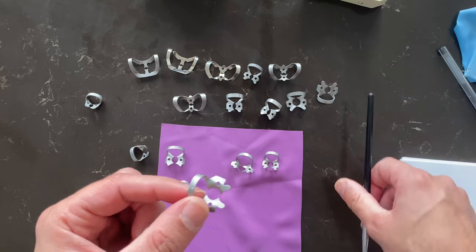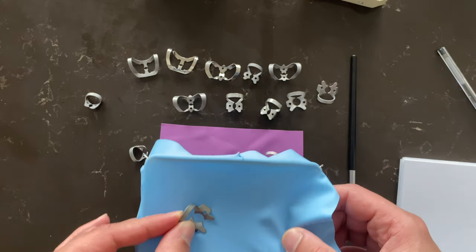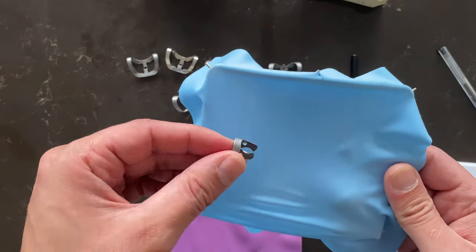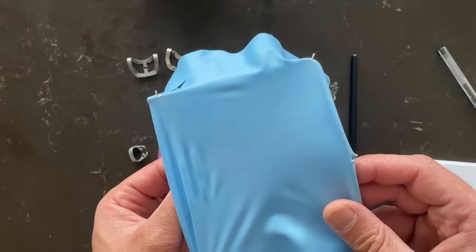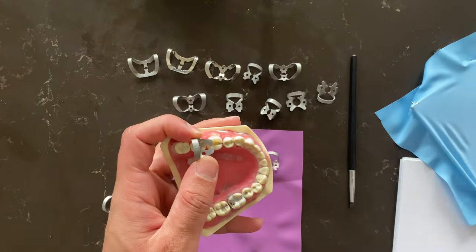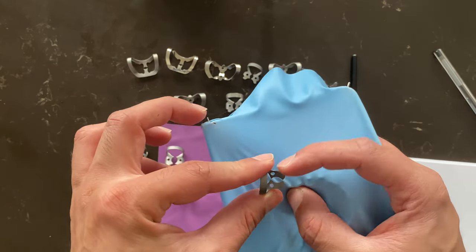The advantage of a winged clamp is that you can assemble everything outside, and once you've assembled all your rubber dam, you just need to place it in the mouth or on your mannequin — it becomes a lot easier. With a wingless clamp, because you cannot do this, you basically have to apply the clamp first in the mouth and then follow it with the sheet on top. Or some people put the sheet first after the punches and apply the clamp on top, because they don't have the wings to hold it.